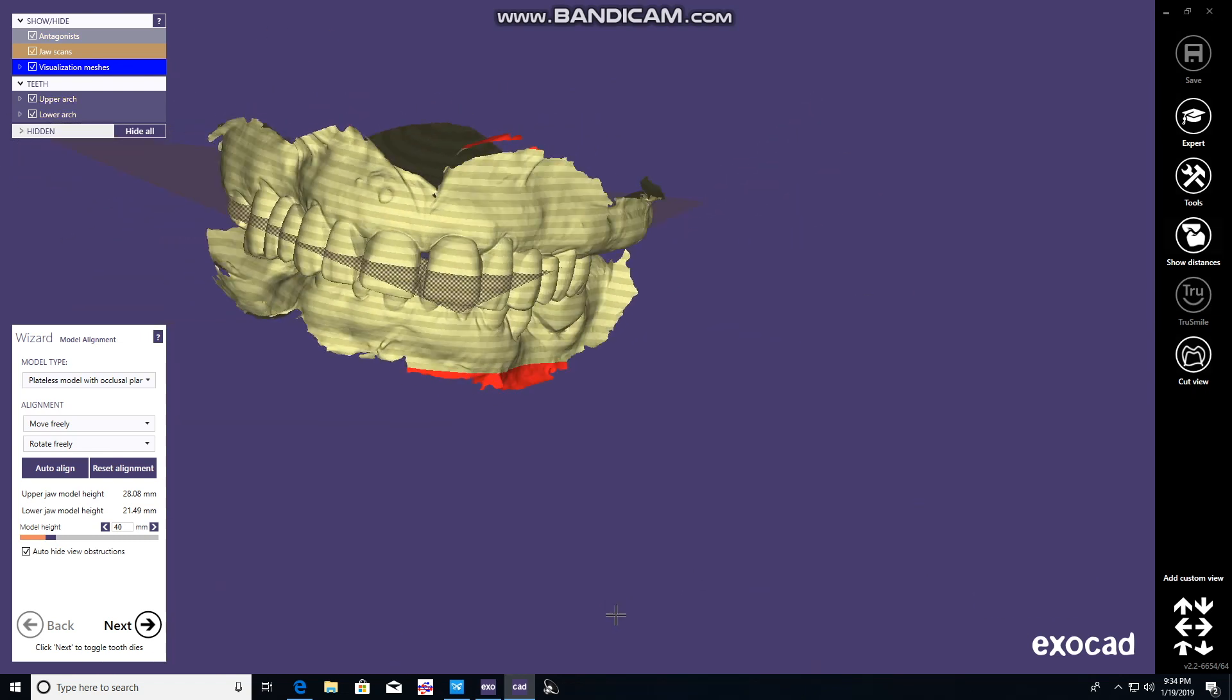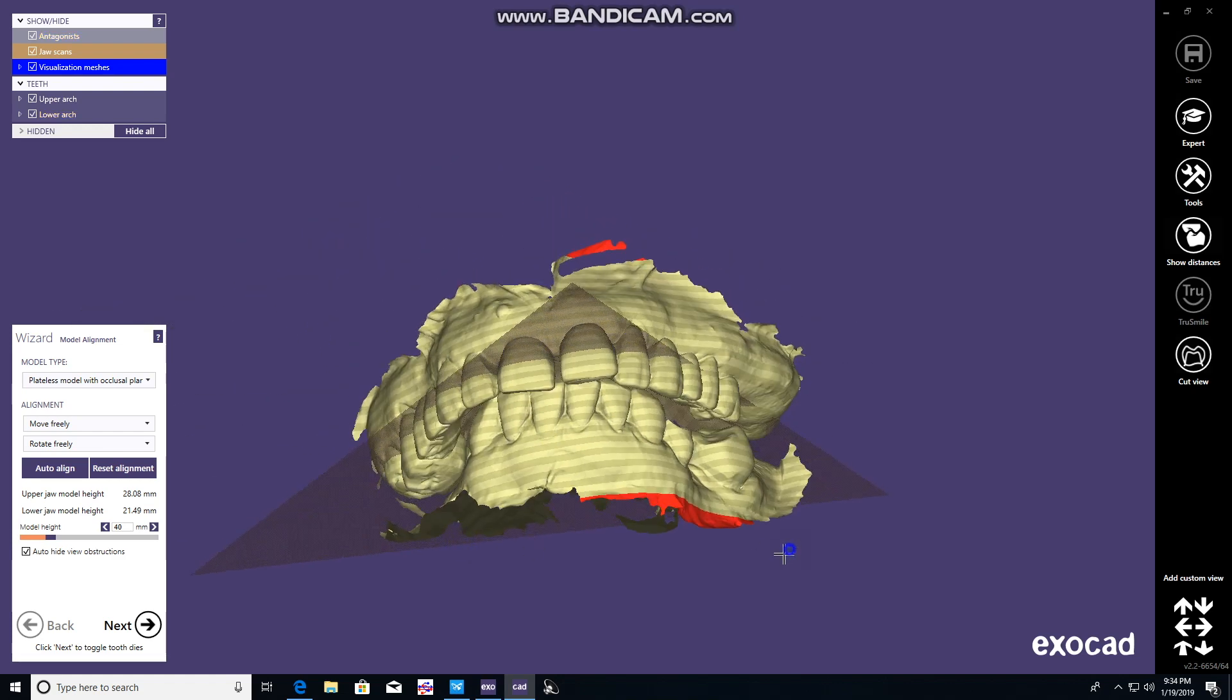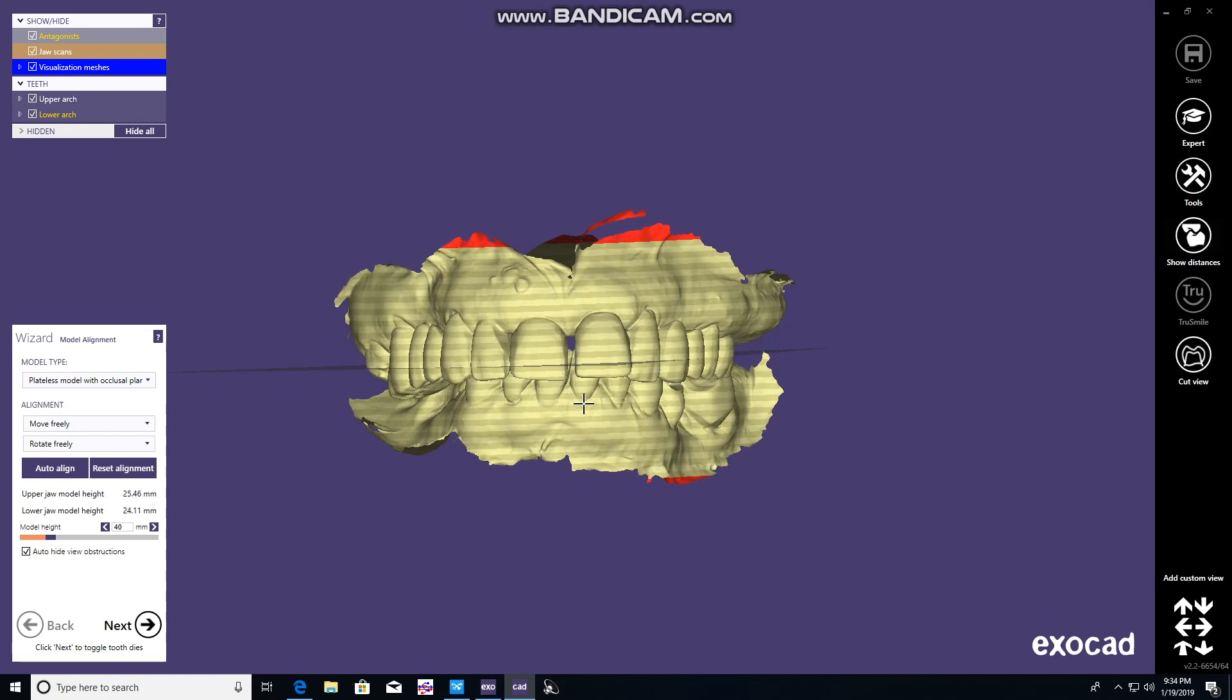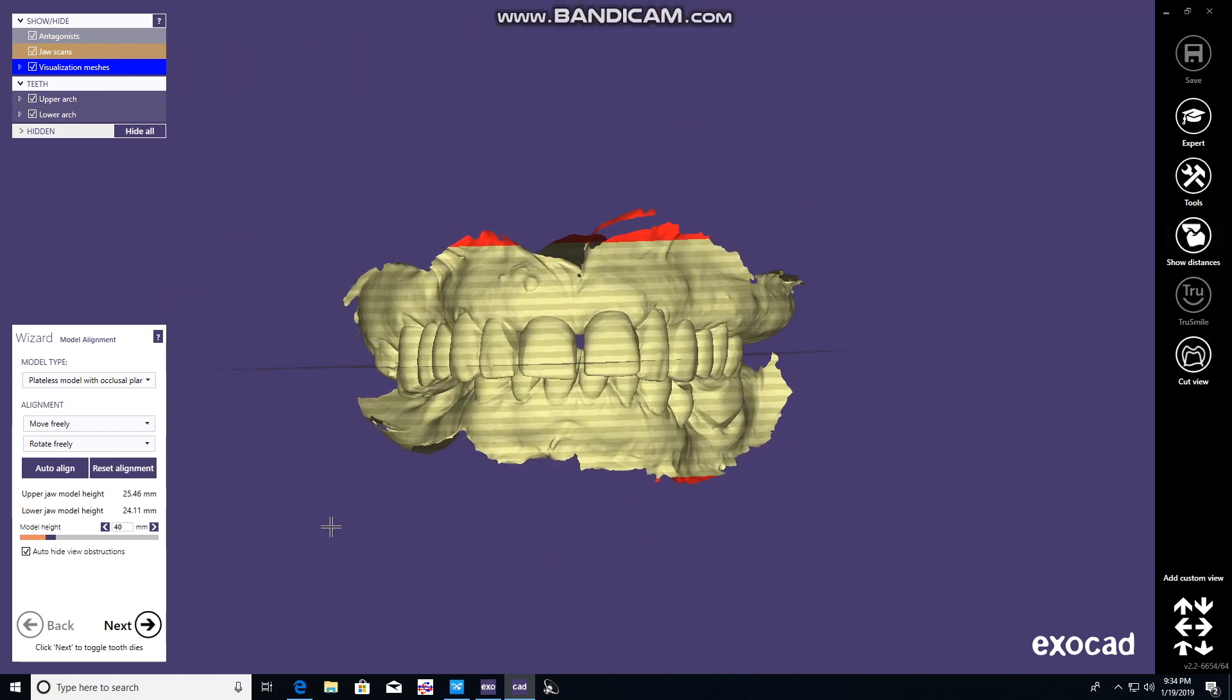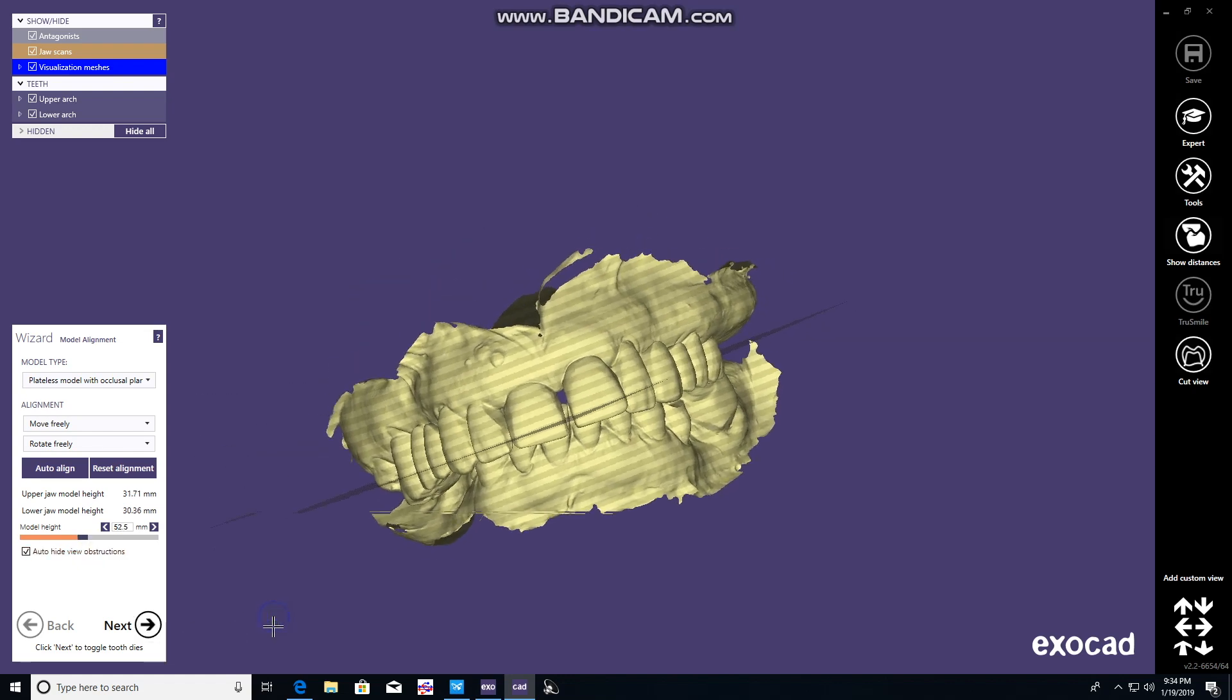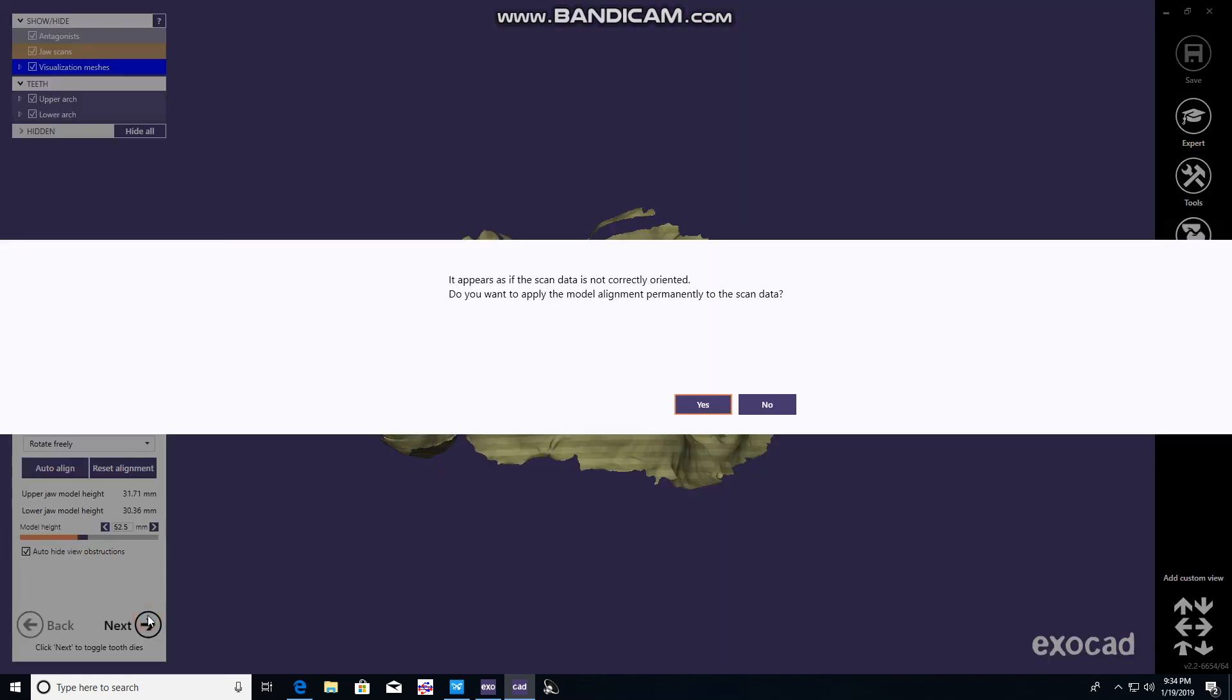You can do quite a bit here in simple wizard mode. In expert mode, you can move things even more, but for now we're pretty happy. We're going to move it up a little bit, and you'll notice the red lines on the models. We need to get rid of those. That's telling us there's 40 millimeters, and the scans have to fit within it. So we're increasing it to make our model base larger. Now you don't see any red, so we're safe. We move on to next.